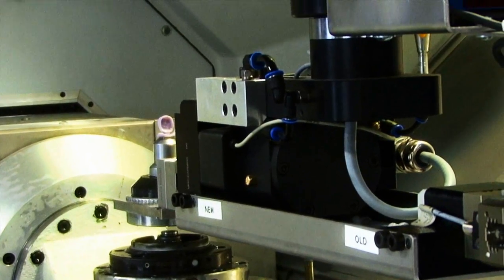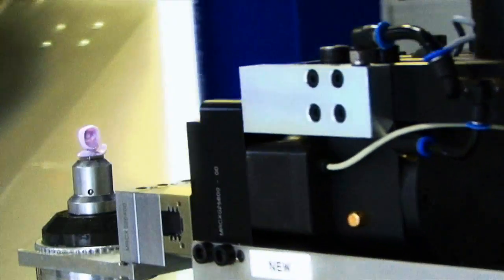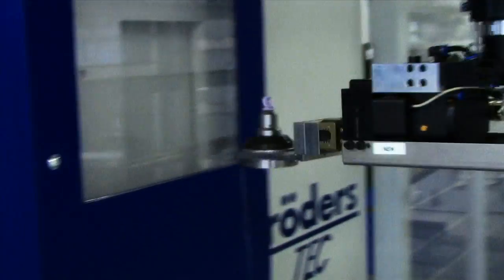When complete, the robotic arm removes the mount and delivers the final milled restoration to a Diadem technician.